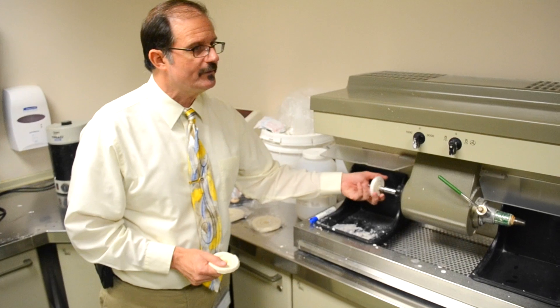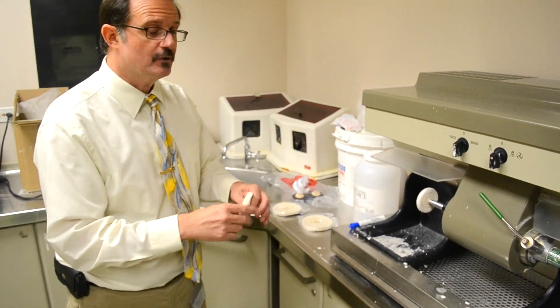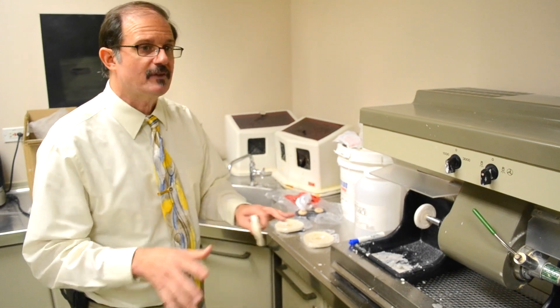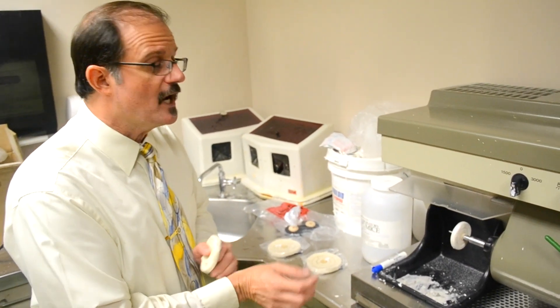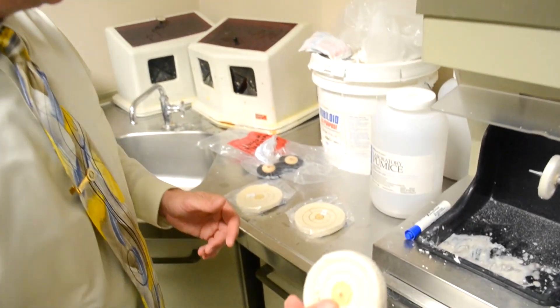While you're in Simlab, learn what they do. I'm going to show you what they do so that downstairs when you get there, you'll know how to set up your private offices in a way that you can keep control and avoid cross-contamination with your own patient pool. So the smaller one is for pumice.